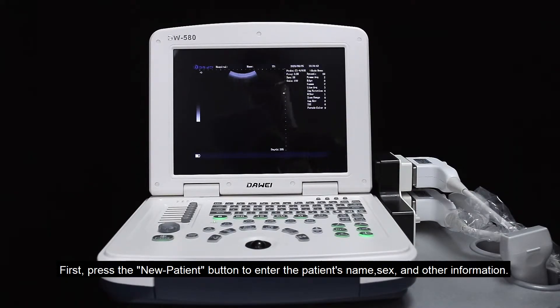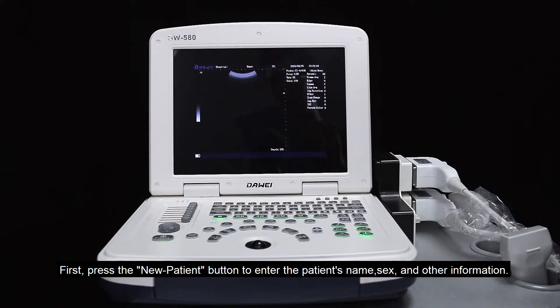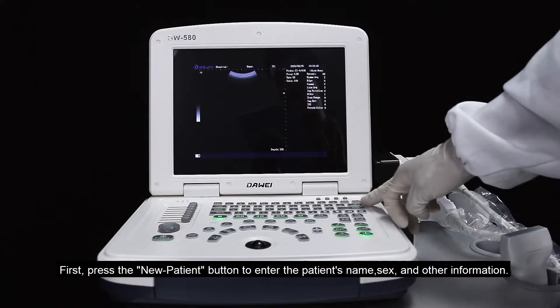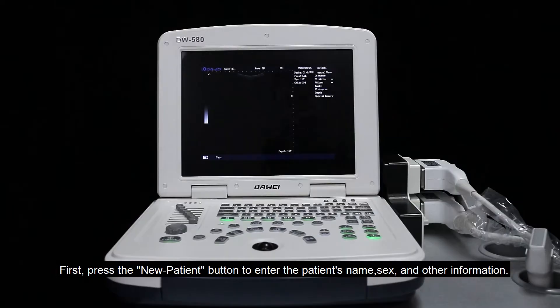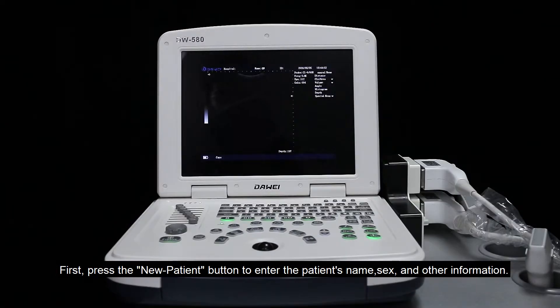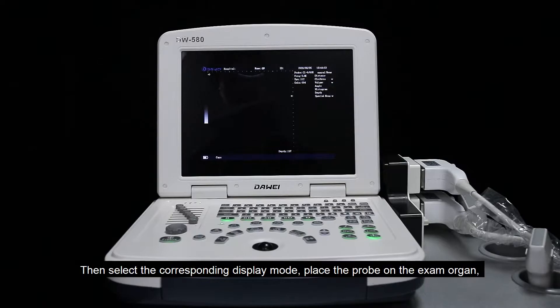First, press the new patient button to enter the patient's name, sex, and other information.